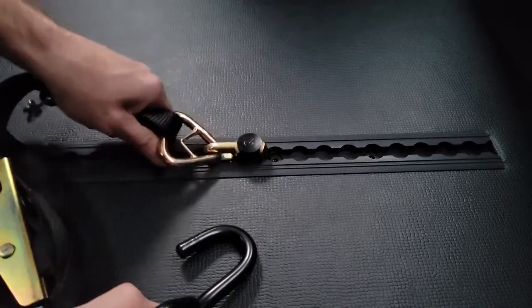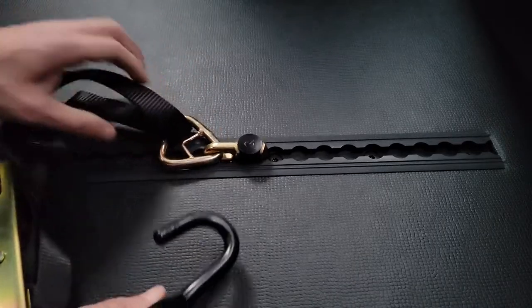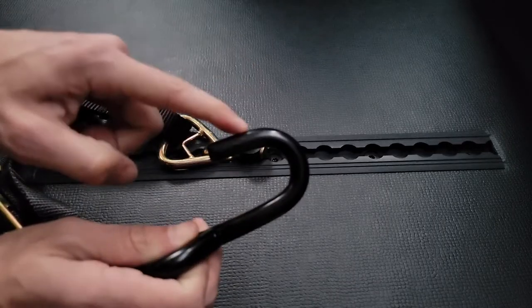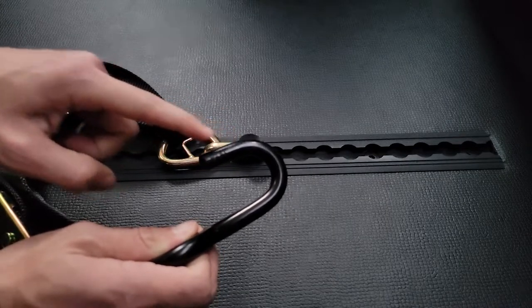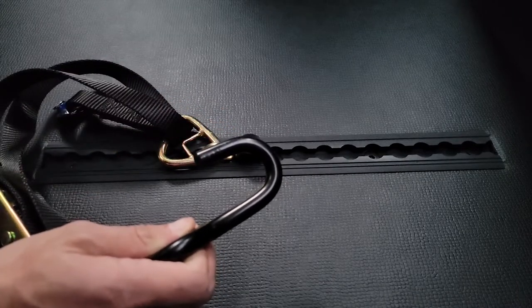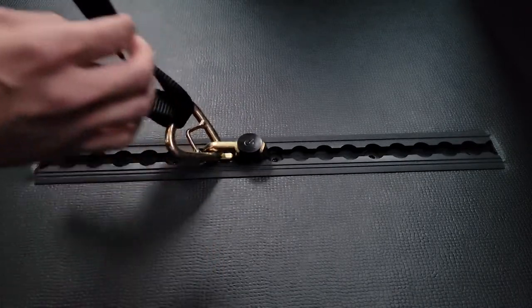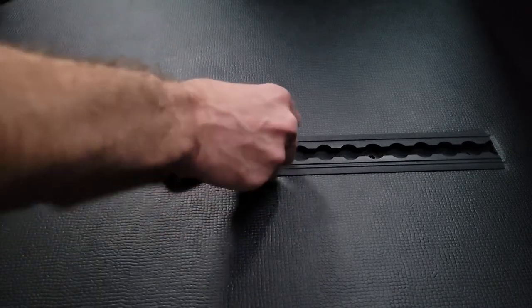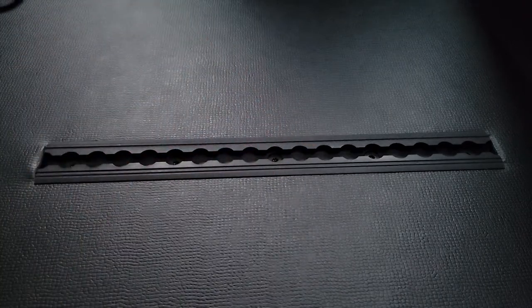Once this is nice and tight, I'm going to take this end and attach it to the wheelchair.